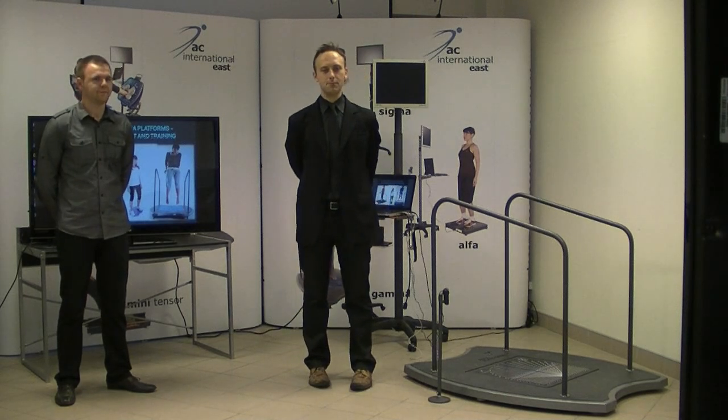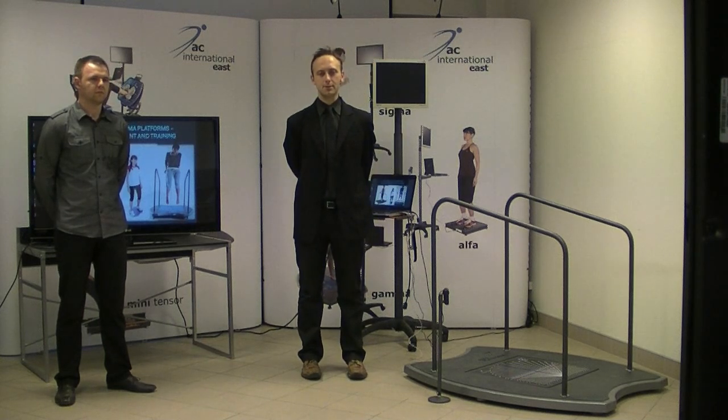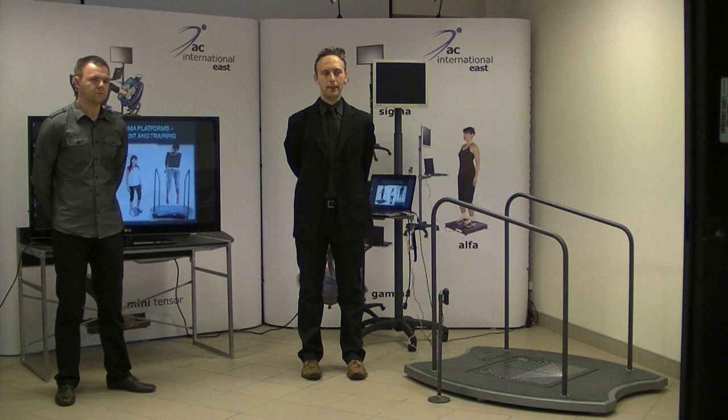He will also present the information about the software for using the platforms in the rehabilitation process of the patient, and then the information about the components of the platforms.